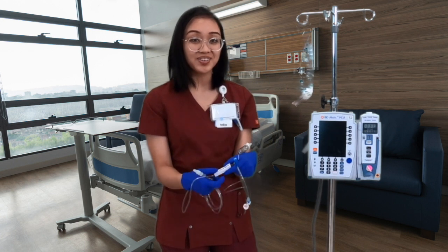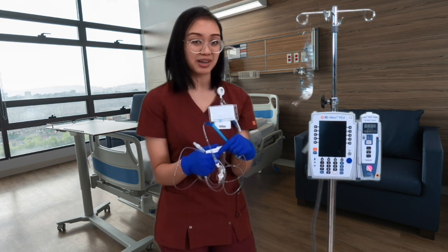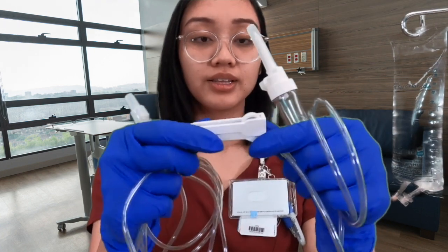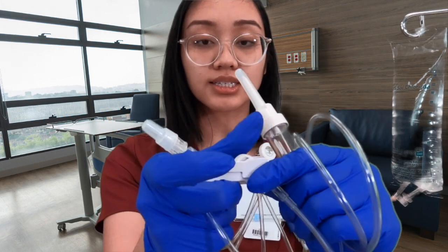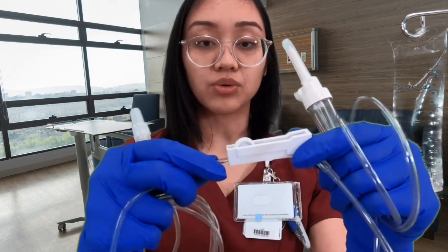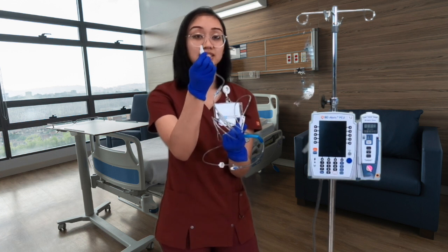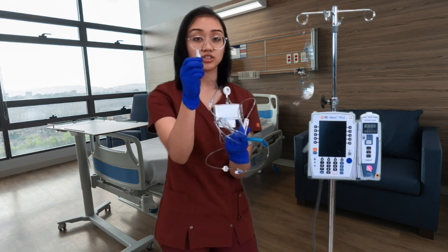A good key note is to always clamp your tubing shut prior to spiking the bag, or else fluid will get everywhere. So always clamp it shut. This is your clamp. This is open, so the thicker side is open, and then you're just gonna slide it on to the right. And now it is closed. Other end, and this is what goes to the patient. This is another portion that needs to stay aseptic. So make sure that this is clean and you do not touch it.